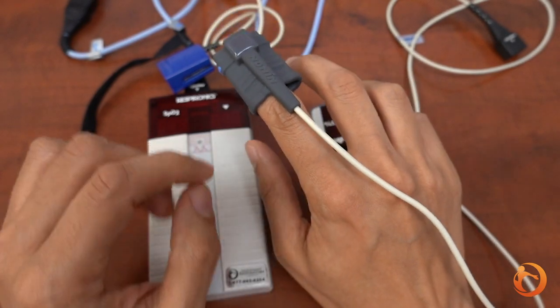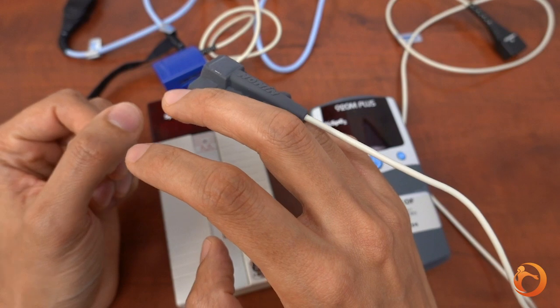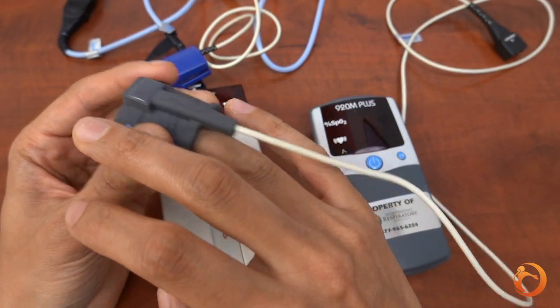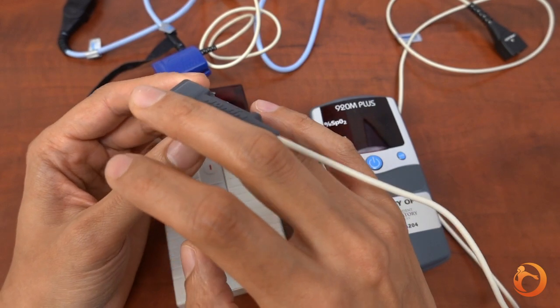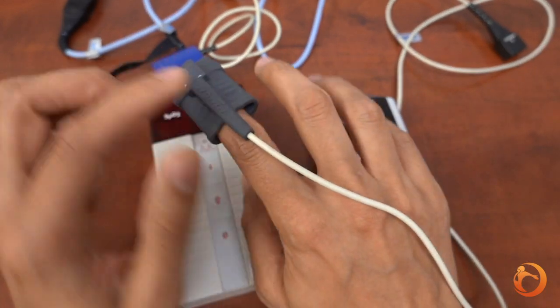We suggest using your index finger, middle or ring fingers. Whichever finger is most comfortable will work as well. For comfort, orient the cable to the fingernail side and to the back of your hand.